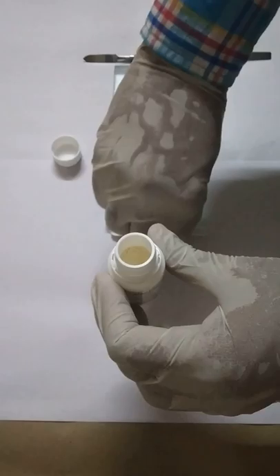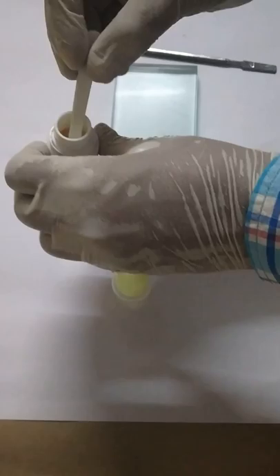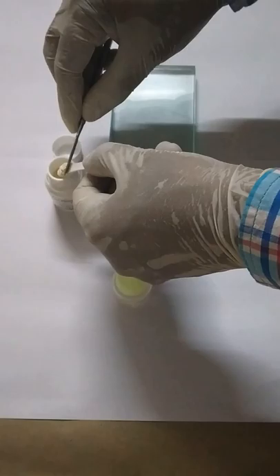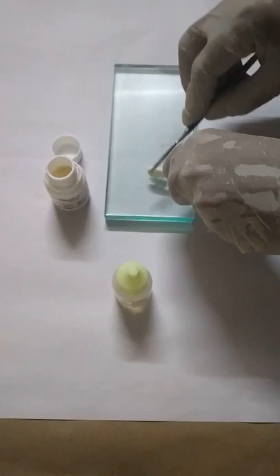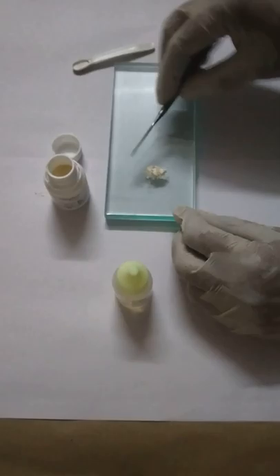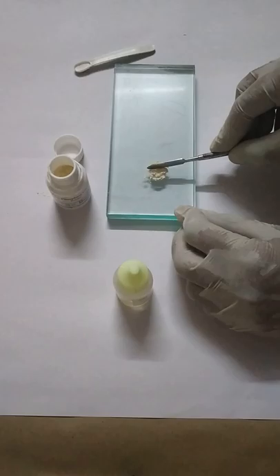Powder is dispensed on a glass slab like this using this scoop. You take one scoop of it, make sure that it's only the scoop like this, and divide it into four to six increments.